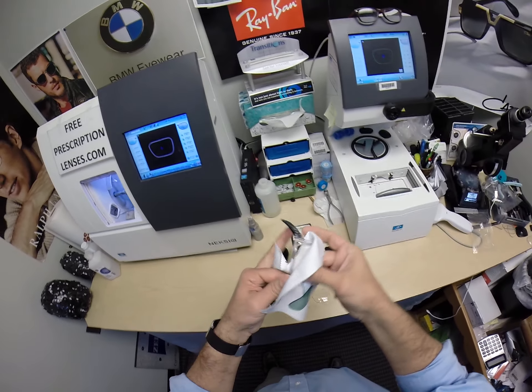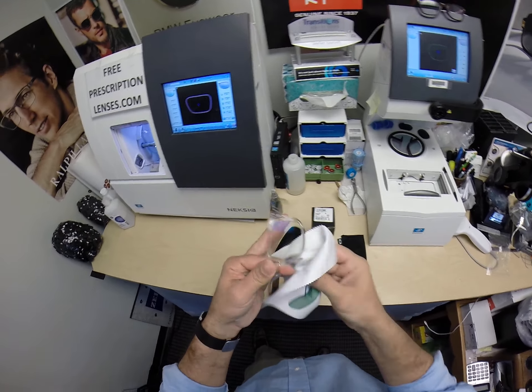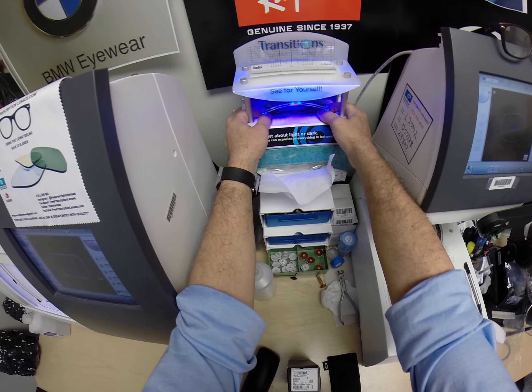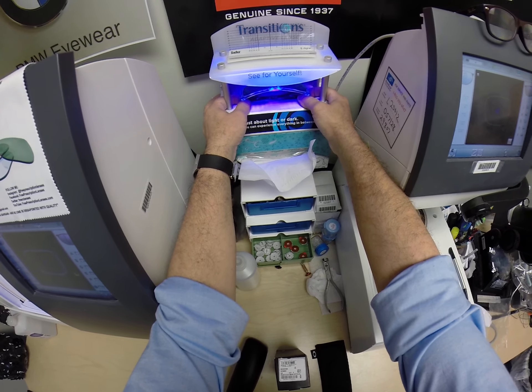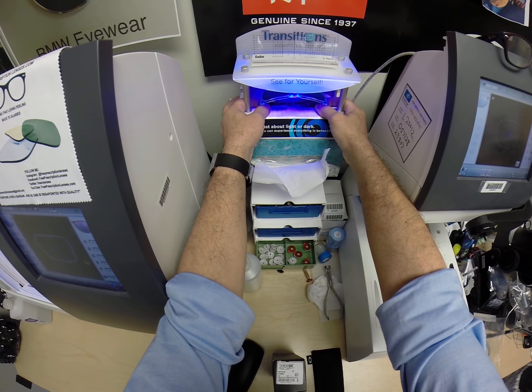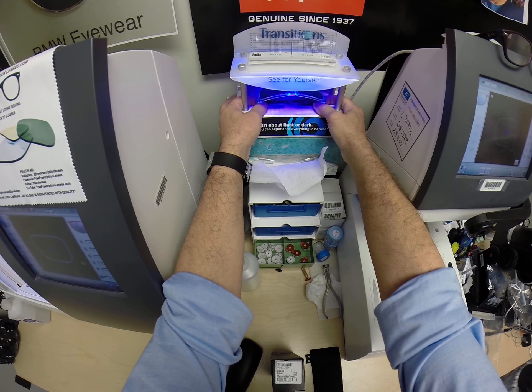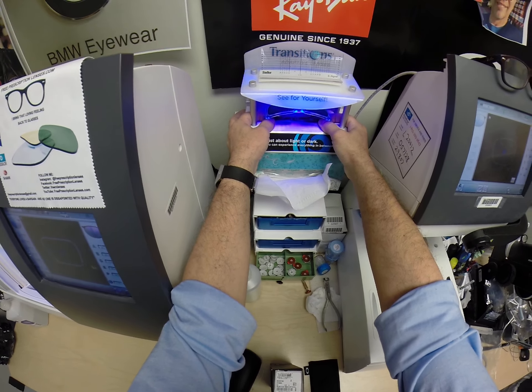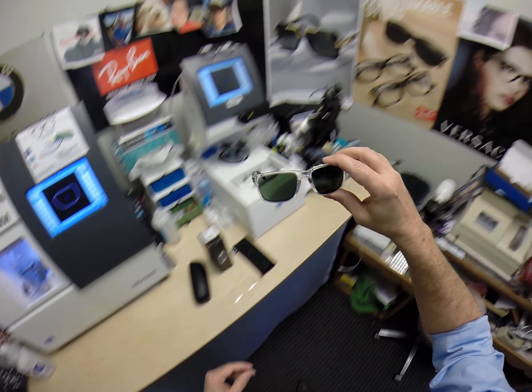This frame at the time of this video sells for $135. Everyone gets one free pair of clear single vision prescription lenses. However, this is one of the few Oakleys I cannot cut lenses for with my equipment — my $40,000 of equipment isn't good enough; it takes $80,000. So I send it to a lab with more specialized equipment, which charges a $25 edging fee, making the total $160. There are many other Oakleys I can handle in-house.